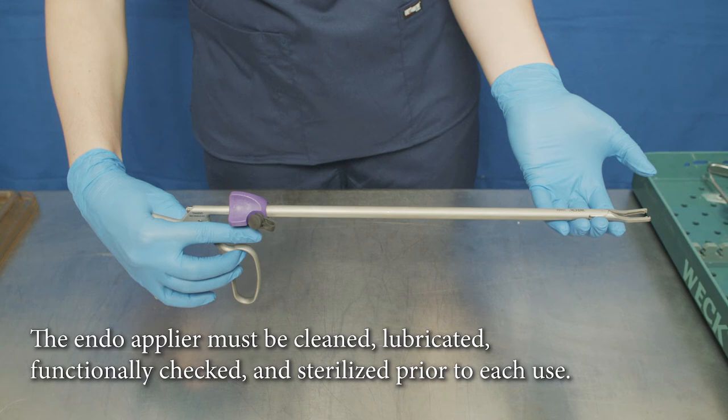The endoapplier must be cleaned, lubricated, functionally checked, and sterilized prior to each use.